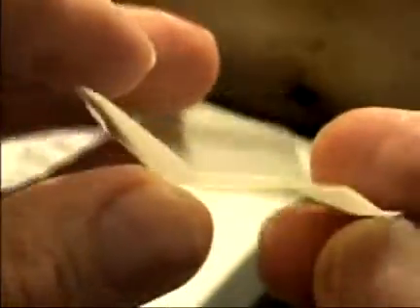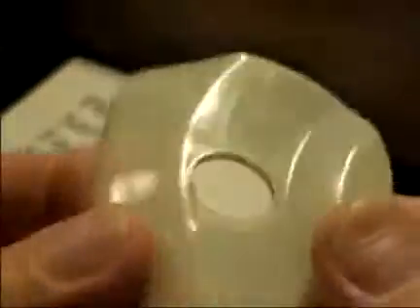We're still left with poorly functioning face shields — that's what you can buy from Reichert through various suppliers. In my attempts to analyze what was going on between the old face shields and the new face shields, I came up with comparing the shapes and comparing the curves. They seem basically identical looking face shields from one manufacturing time to another.